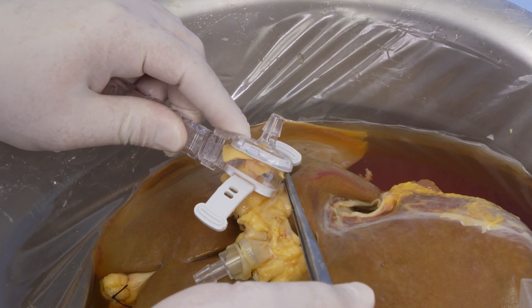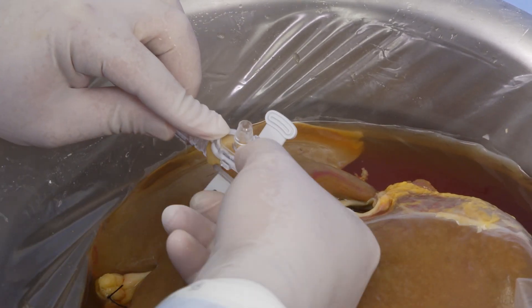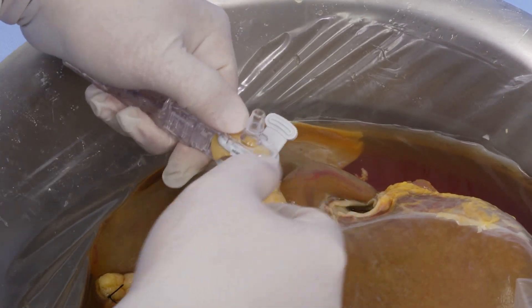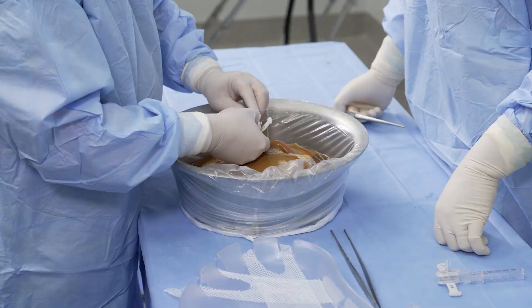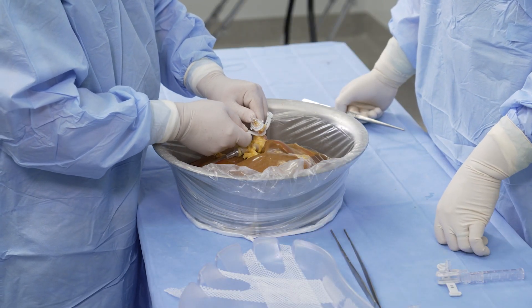Rotate the upper half to vertically align with the cannula ring. Lower the upper half of the cannula, securing the tissue between the two halves. Check that the vessel orifice is centered, circular in shape, and not occluded by viewing it through the magnified sight glass.